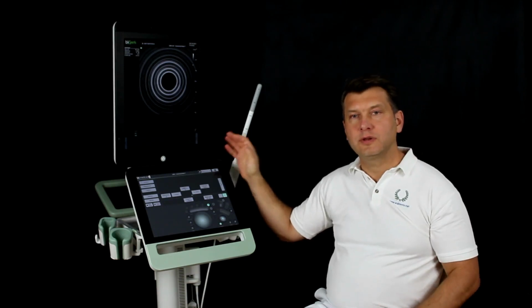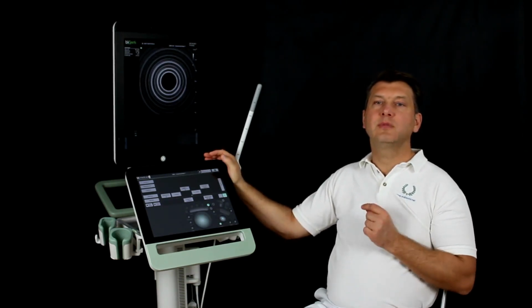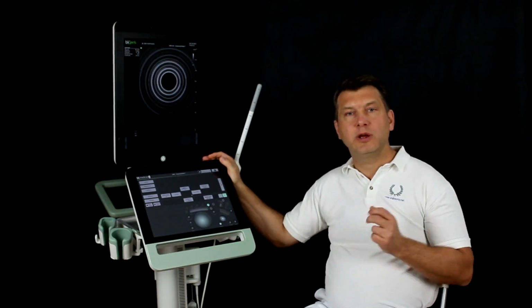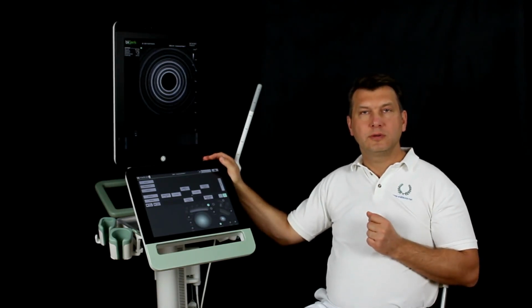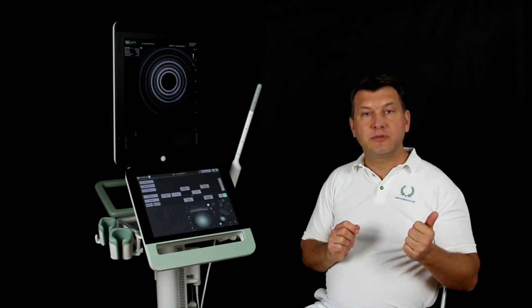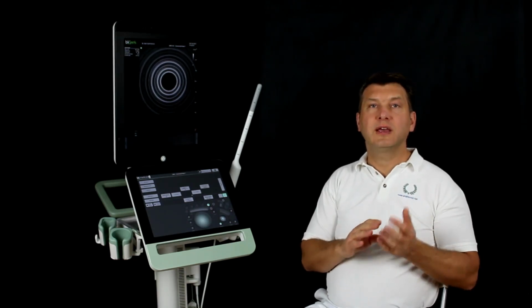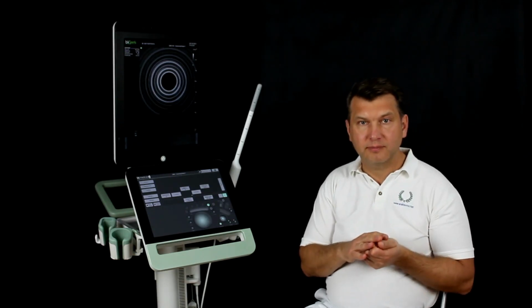In these scanners, these parameters have been greatly simplified and fully automated. However, I will explain why these settings are so important. We start with frequency, depth, width, resolution, distance and acquisition time.